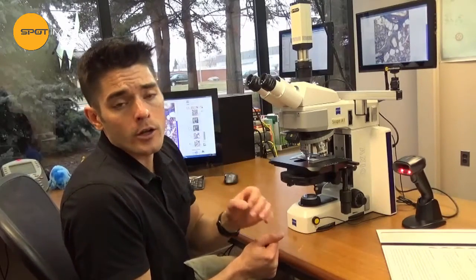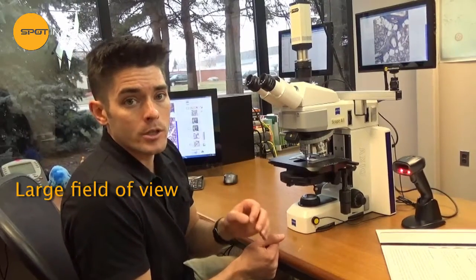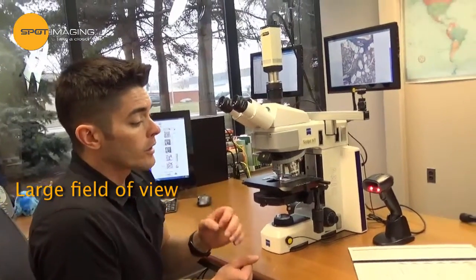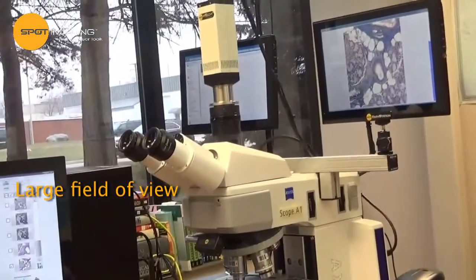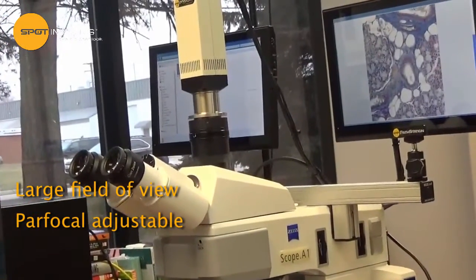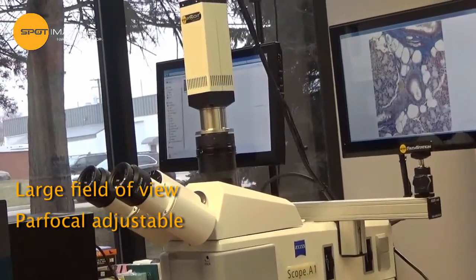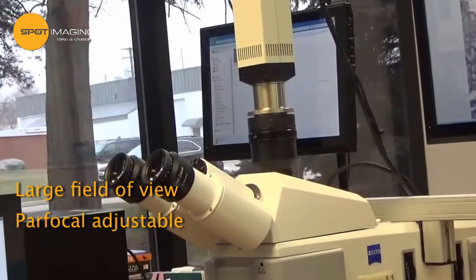The Spot InSight Camera and Coupler provide a unique large field of view which matches the image you see in your eyepiece. Our coupler line allows for mounting to a large variety of different microscopes and is par focal adjustable, meaning that the focus you see in your eyepiece is the focus you get in your image.